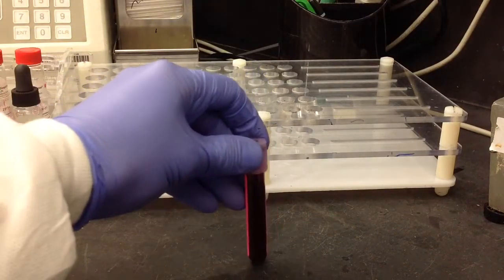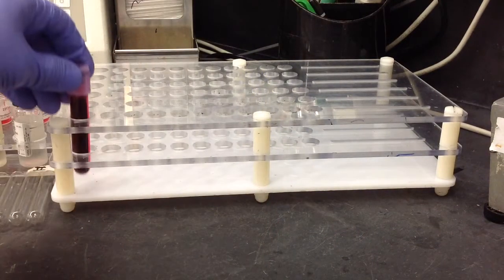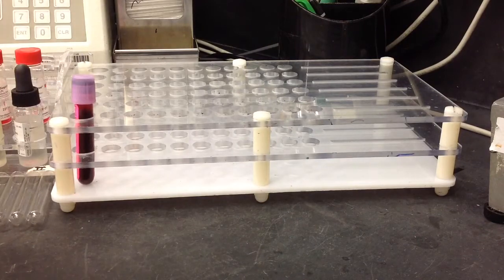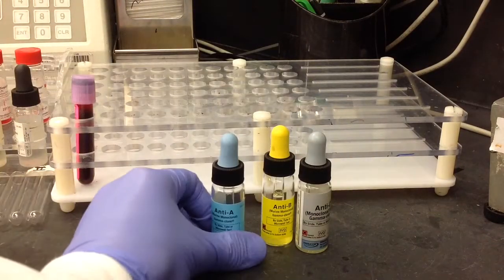In this video, I'm going to show you how to perform cord blood testing, which is going to be a forward ABORH and a DAT.